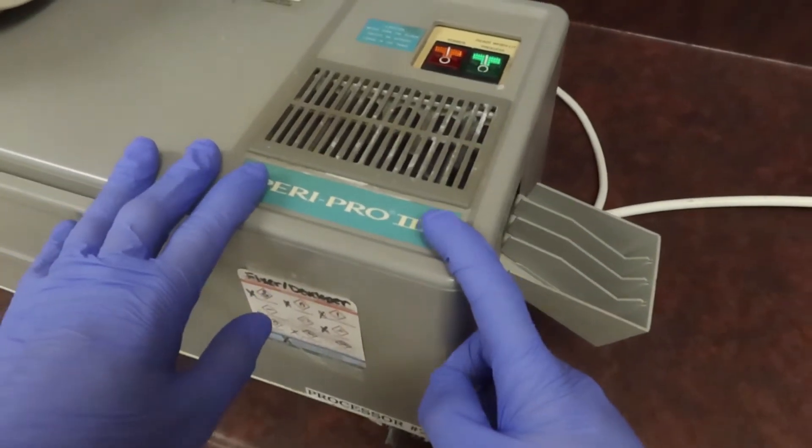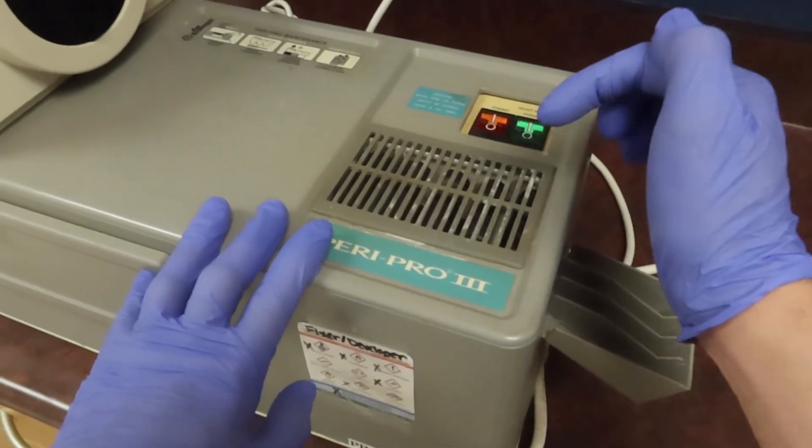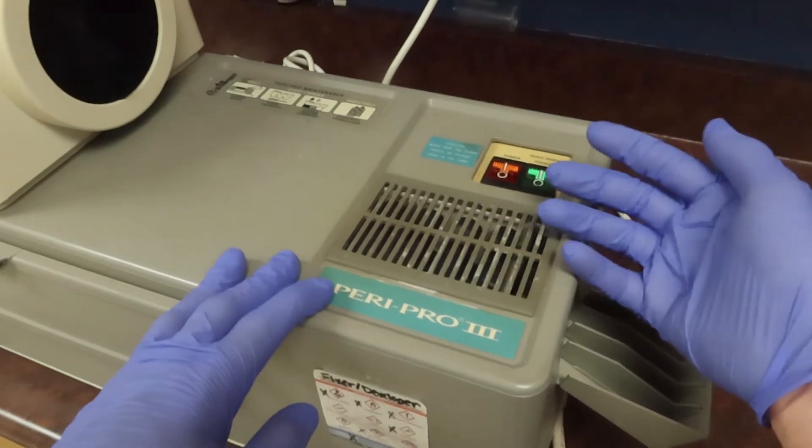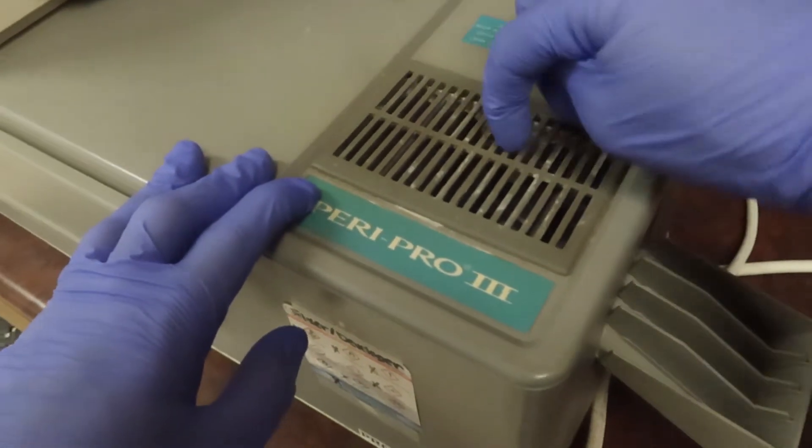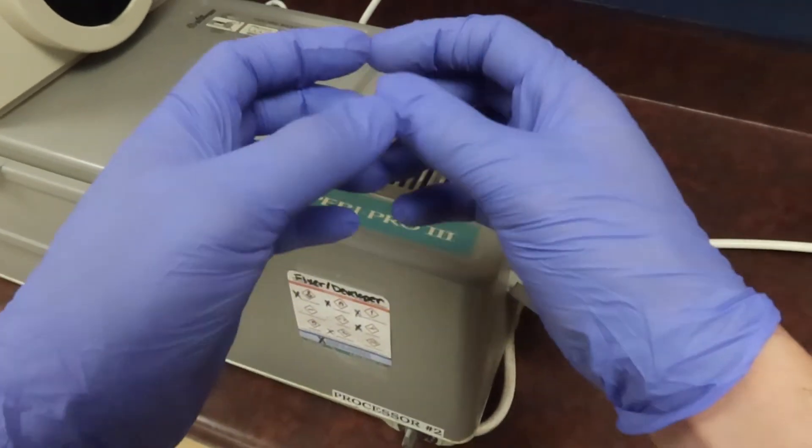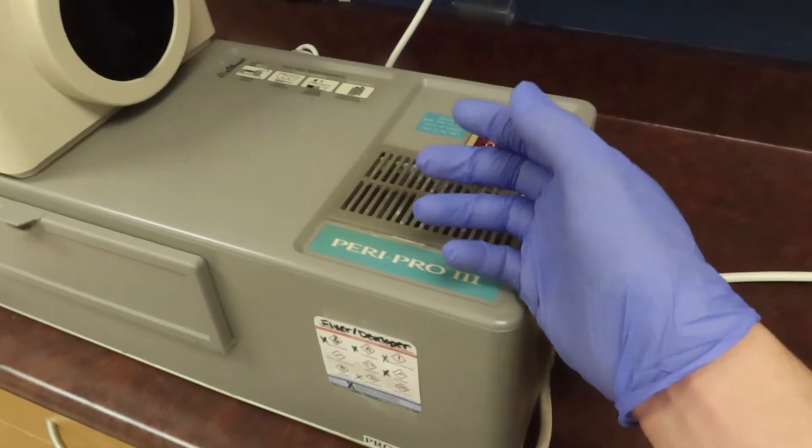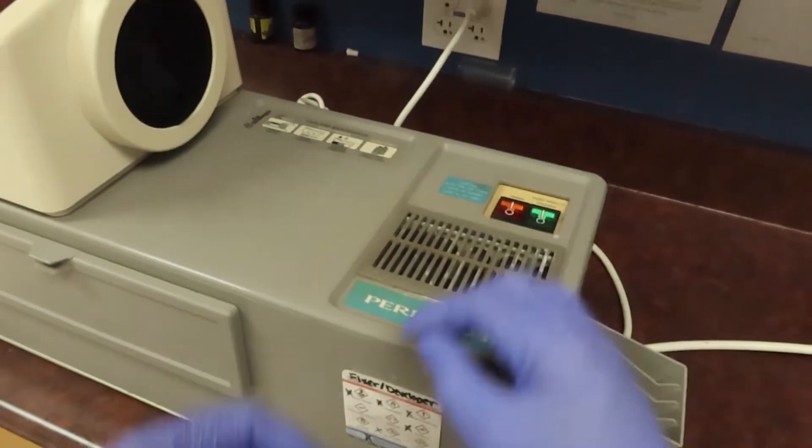One of the issues that can happen is if your heater is busted. When someone was using this, they may have accidentally put something on top, like an x-ray film, and it went and slid down like plinko and got itself caught inside the heating element and short-circuited. You might need to get a replacement piece. Look through a reputable website to change it out. It's not too difficult to do.